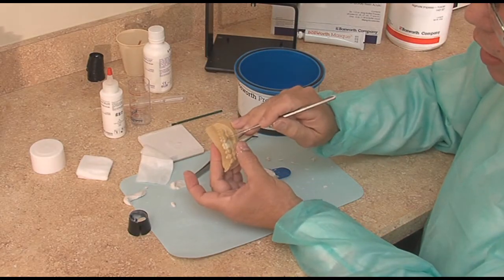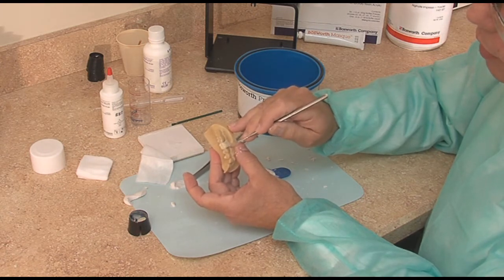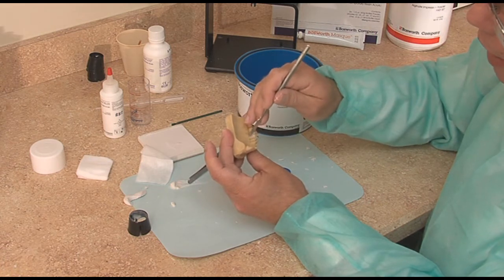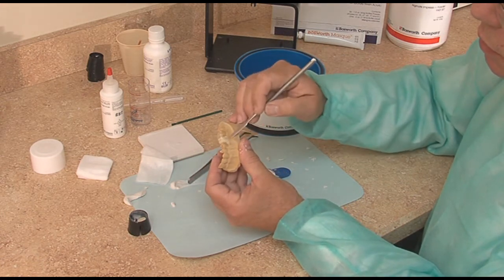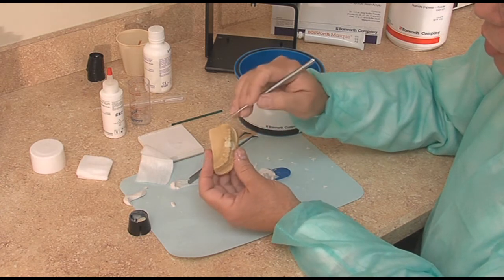In the mouth I may go with a composite plastic instrument so I can get small enough to get interproximal, so that even though the adjacent teeth are lubricated, if there's any undercut it won't lock on. And it is setting up beautifully.